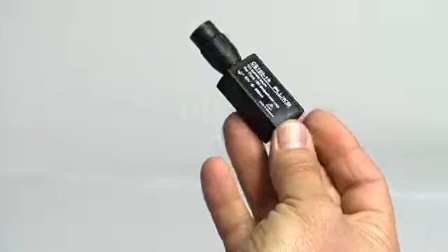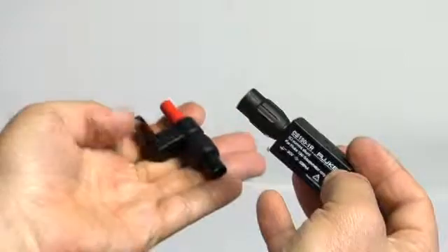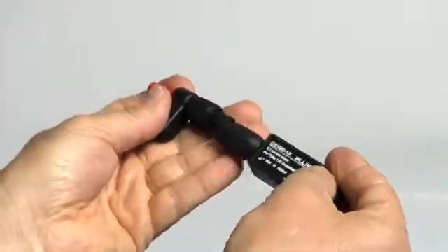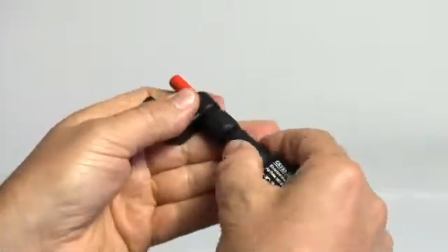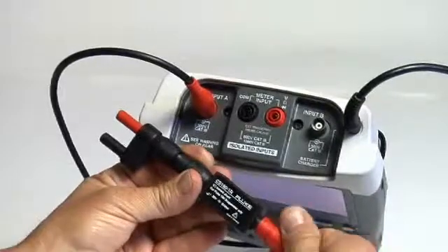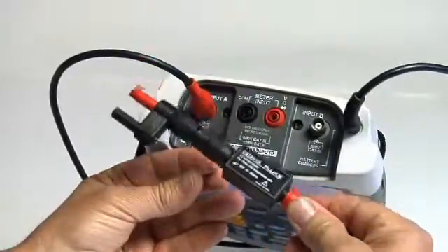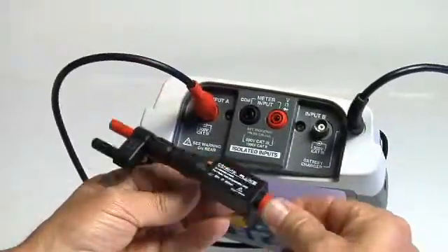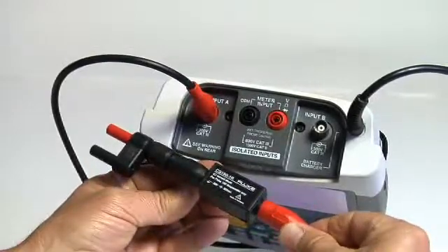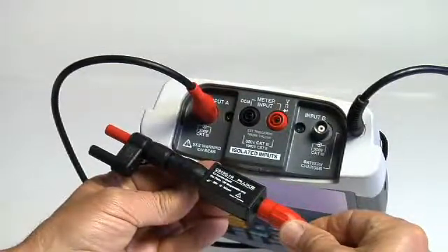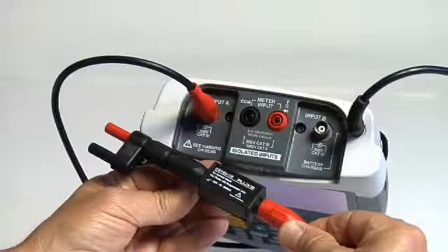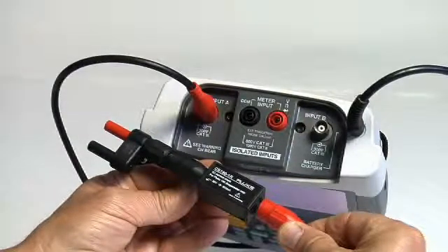You can also measure MAS invasively using the scope meter by connecting the provided current shunt CS190-1R. Simply connect the current shunt to the banana adapter and connect to the scope meter input A or B using the BNC cable. The banana adapter then connects to the banana plug found in the electronics cabinet of the x-ray generator.